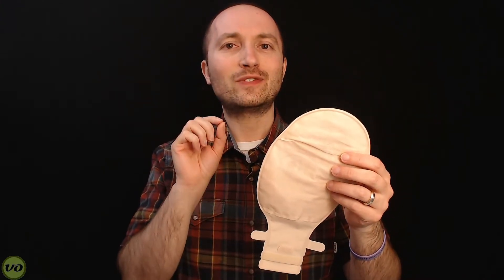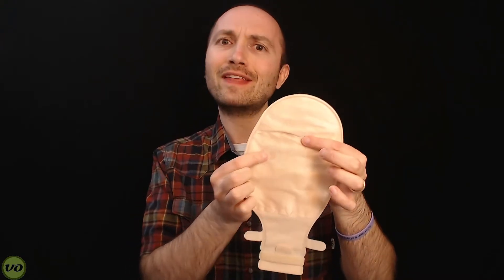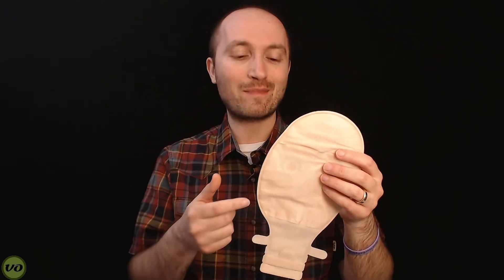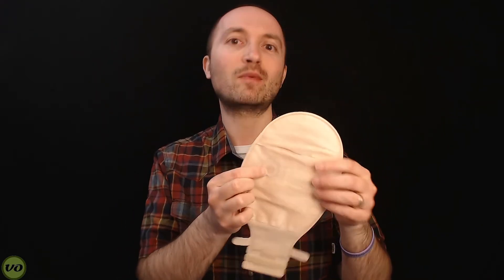One thing that's pretty unique — part of the feature set of this appliance — is the fact that the filter is all the way down here. I'm going to show you a dissection of this bag in a few moments, but let me get through the rest of this first. It is an unusual spot, and there are a couple of reasons behind that.